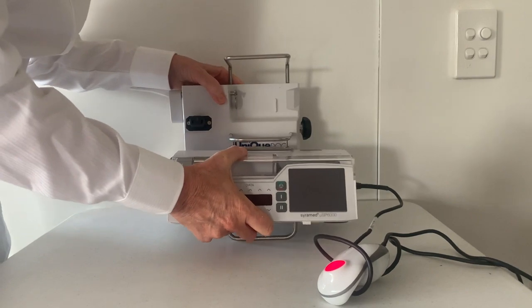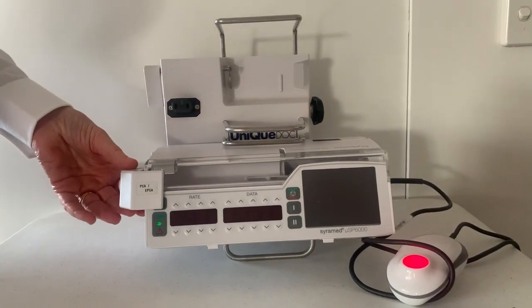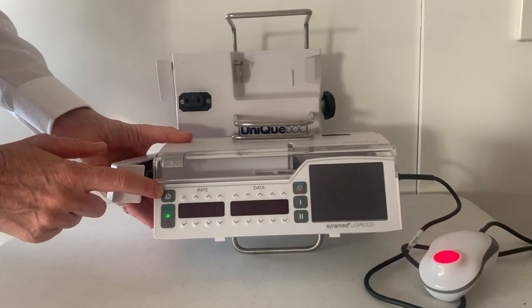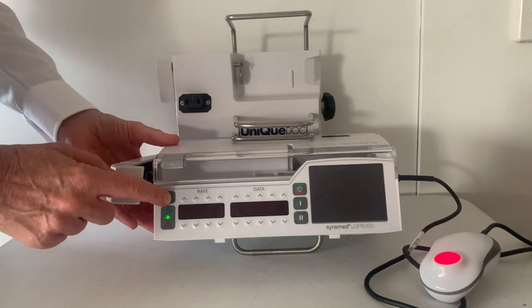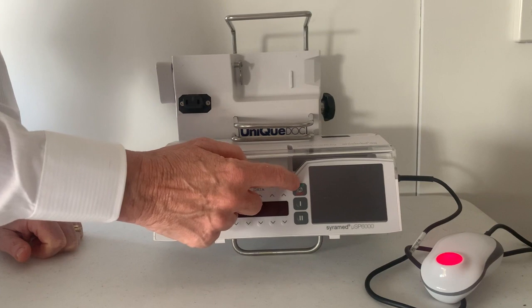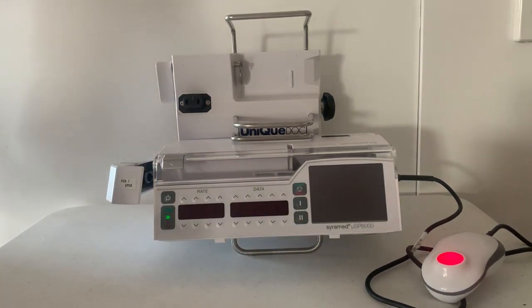It can be put into a docking station or attached directly to an IV pole. On the front is the lockable arm and the PCA patient bolus button, the on and off key. To turn the pump off, hold for two seconds. If you'd like to put the pump onto standby, just press briefly. This is the rate window, the data window and the LCD screen, which is a touch colour screen. Green and red for start and stop. These are two hard keys which have corresponding soft keys when you turn the pump on — one to escape and one to confirm.